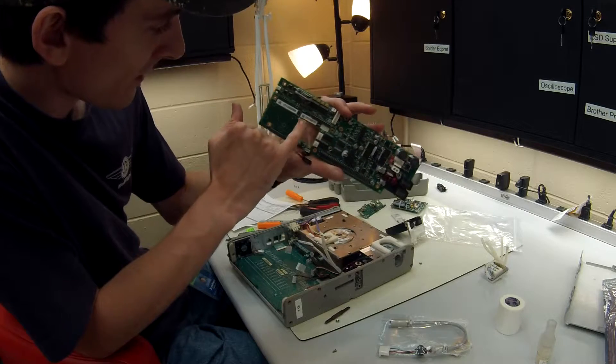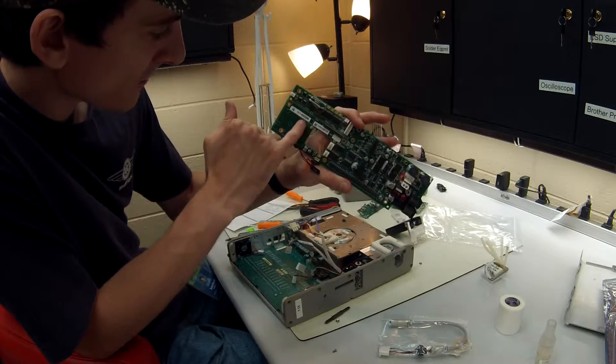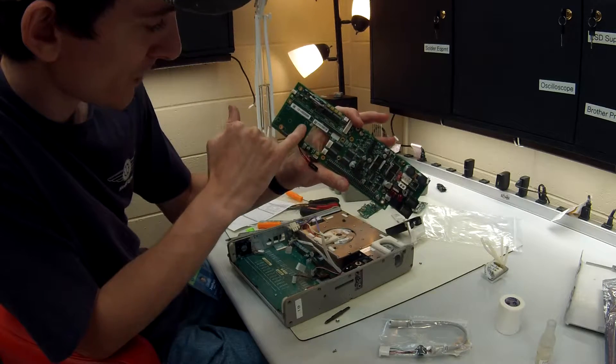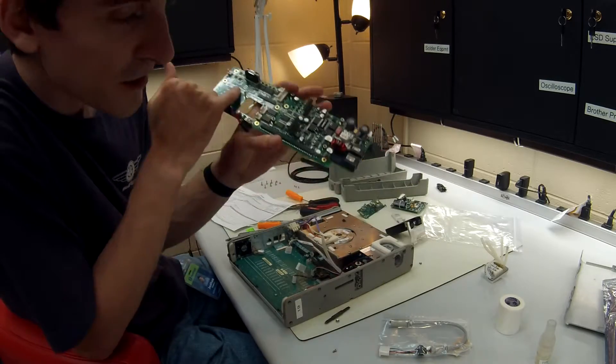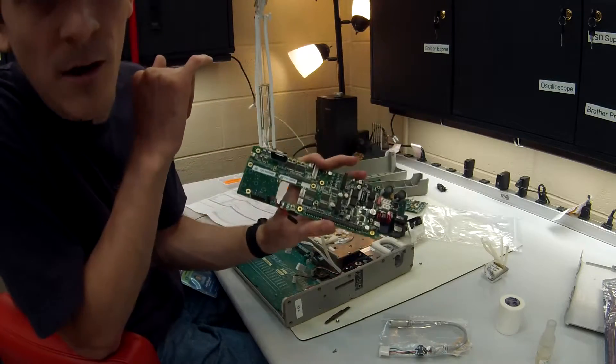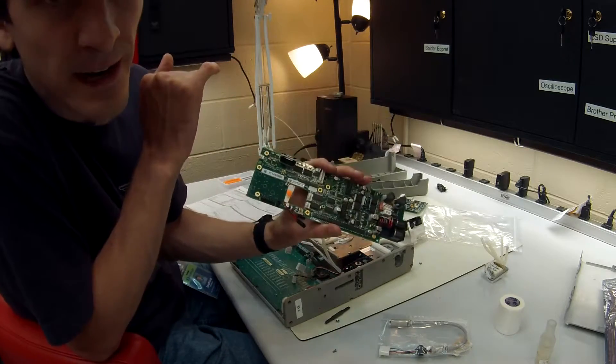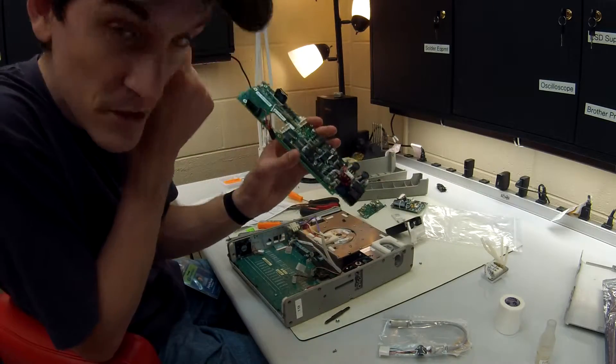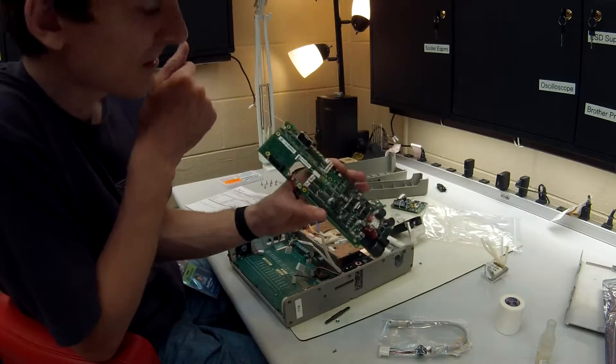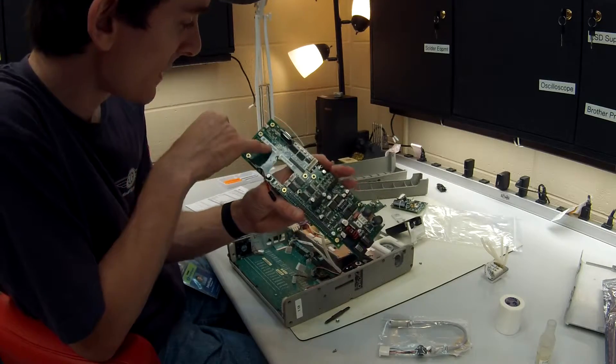Where the solenoid manifold actually goes into, you can either do it now or you can do it later. If I do it later I usually forget, so best to do it now. You're going to want to write it down on your service record.